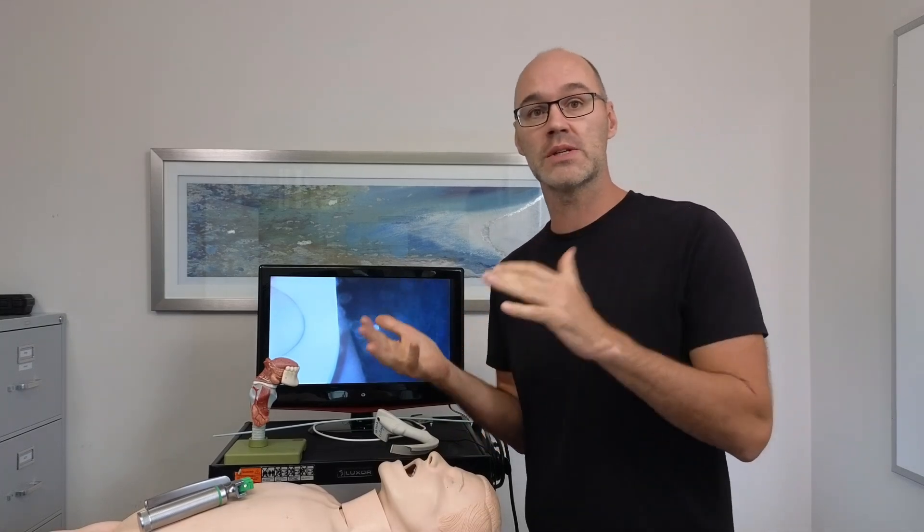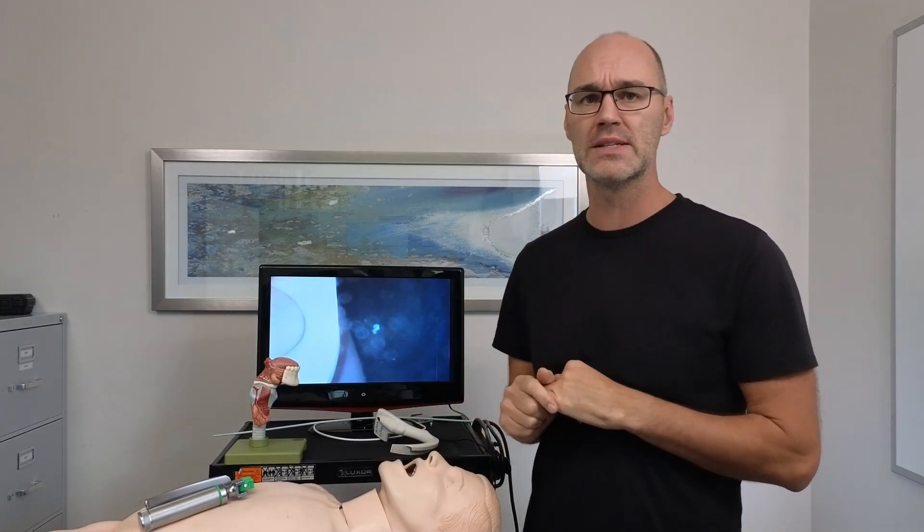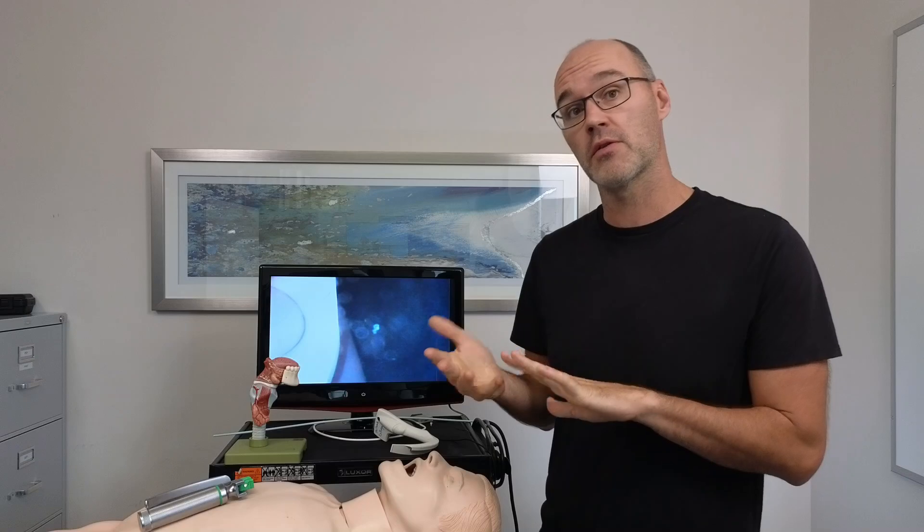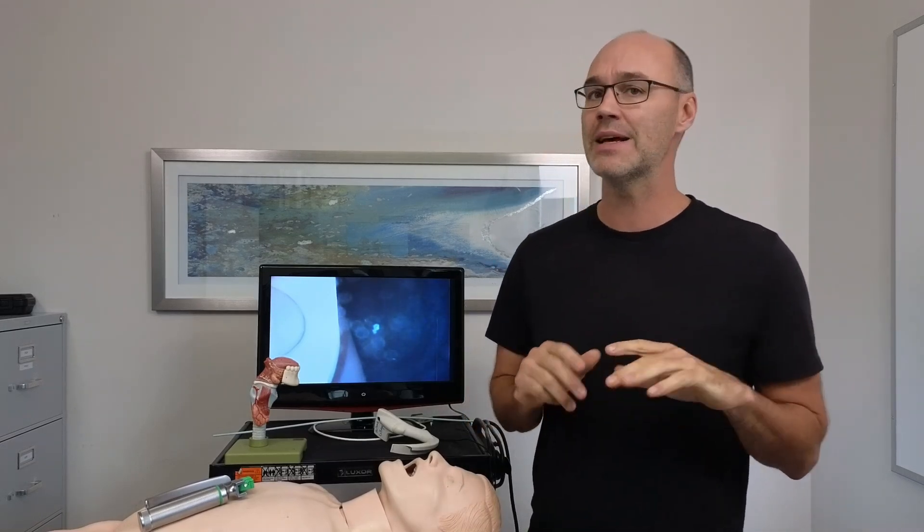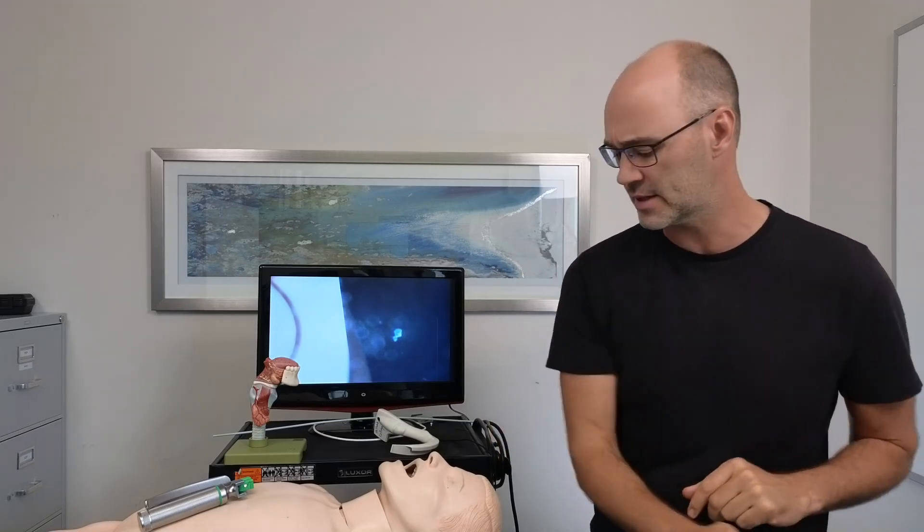We're seeing higher success rates, higher first-pass success rates. It's now crossed the threshold where resources like UpToDate are advising that first attempts should be made with a video laryngoscope unless there's another reason that the operator sees that would not be as useful. So very much changing our practice and should be changing our practice.